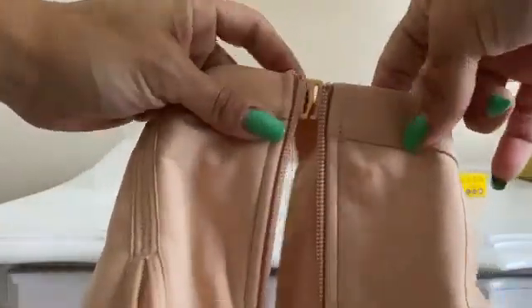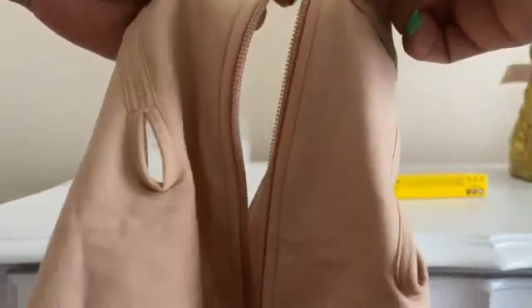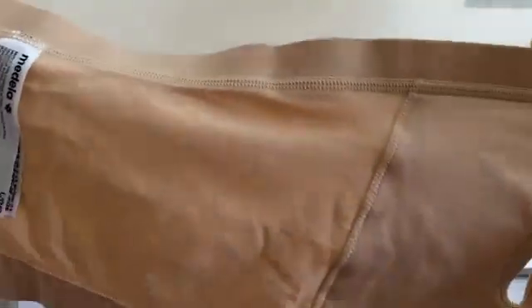And on the bottom too — really nice soft fabric. The way you put it on, you open this zipper up like this, and then you also have this little snap over here that you just unsnap right here like that. It opens it up, and you can see here's one hole and here's the other hole.